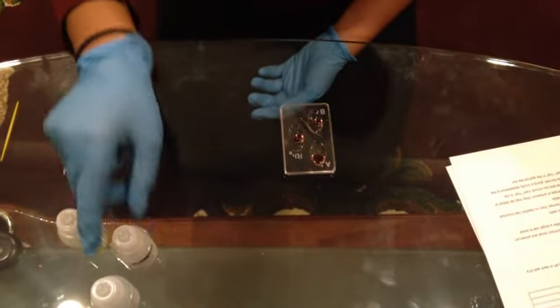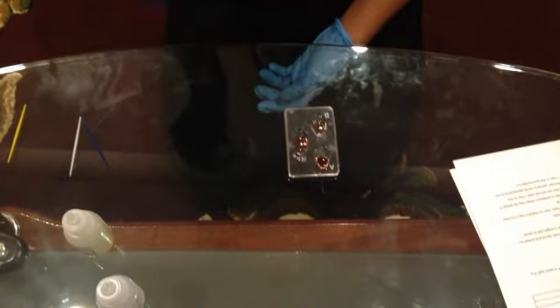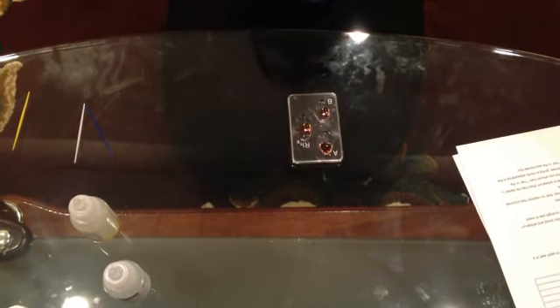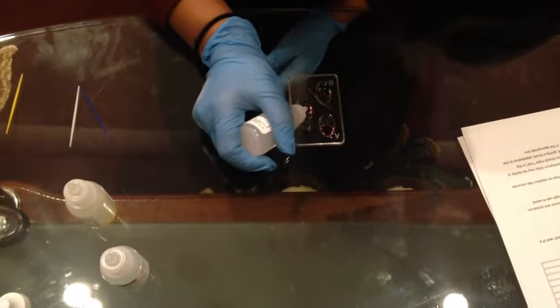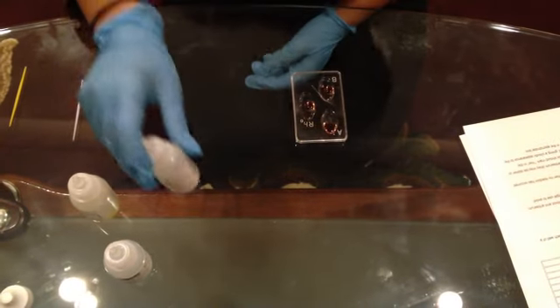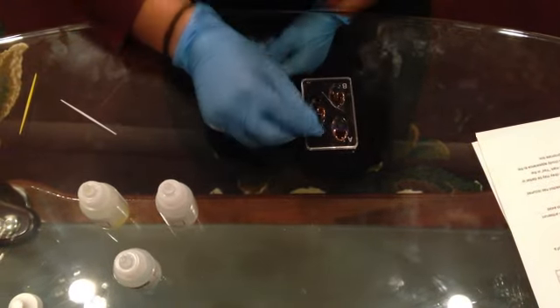And for the last step, I need to add the anti-RH serum for the additional column, which is the RH column. Since we're done with this, now we have to stir this for 30 seconds and see the reaction recorded.